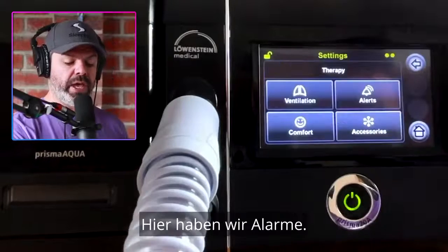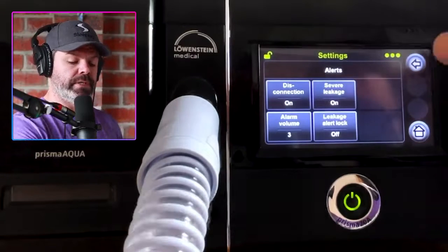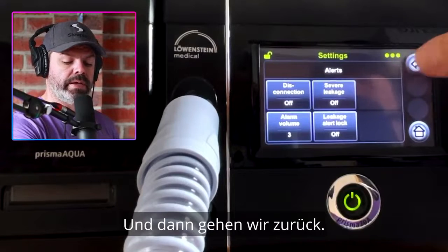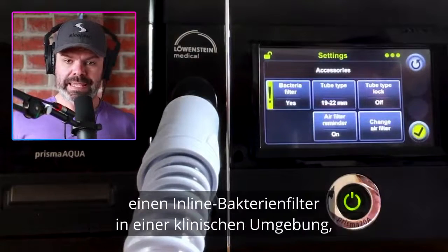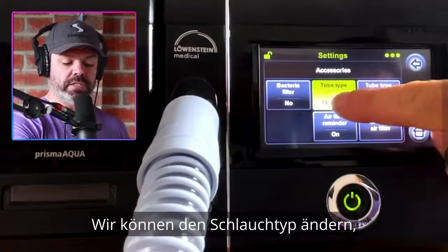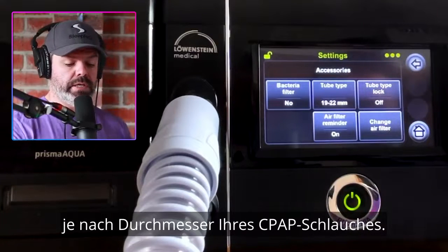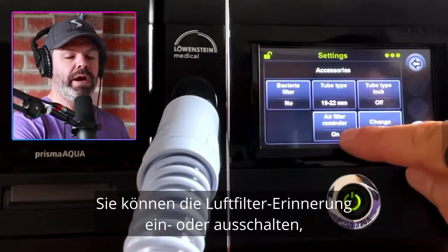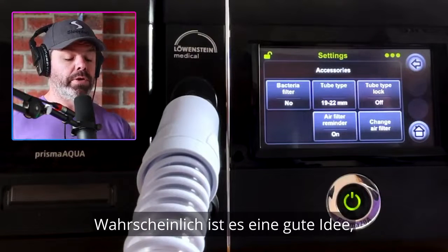Let's go back to home. Here we have alerts — we can turn on the disconnection alert, the severe leakage alert, and so on. I'm going to have them off for now. Then accessories — bacteria filter. You would switch this on if you were running an inline bacteria filter in a clinical setting, hospital, etc. Most of you won't have that, so switch it off. We can change the tube type: 15mm, 19mm, or 22mm, depending on the diameter of your CPAP tubing. Tube type lock is another clinician lock — keep that off. Air filter reminder — you can have that on or off; probably a good idea to have it switched on.